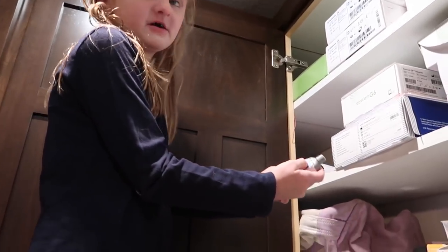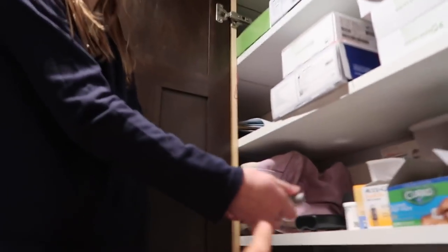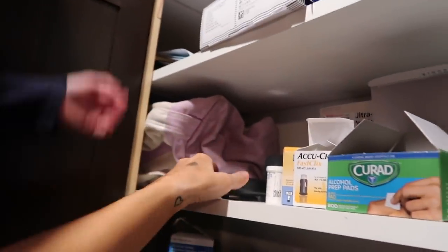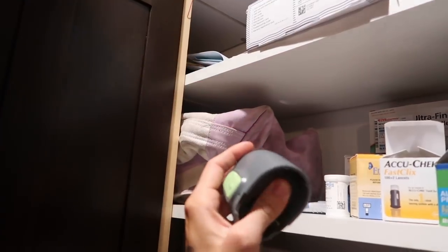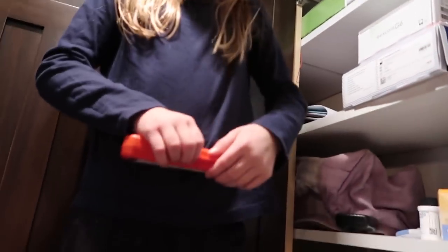We have this shot that we never use. When you pull it down and push the button, it works. If you push the button without pulling it down, it won't work. This will be used if she wanted to check her blood — it's a finger poker. This was her old inserter thing; we don't use that anymore. We have it just in case. This is in case I pass out.